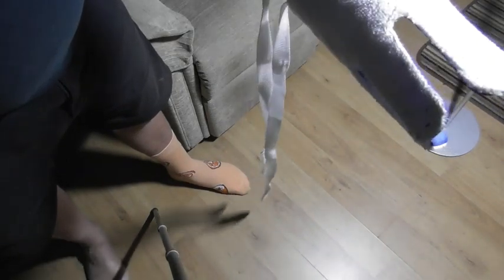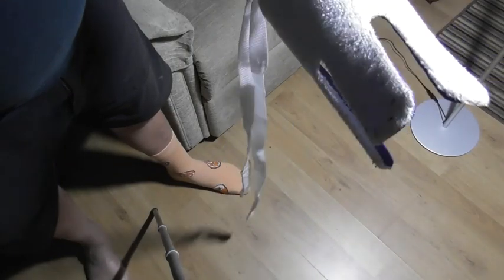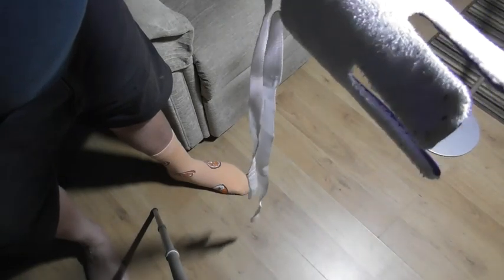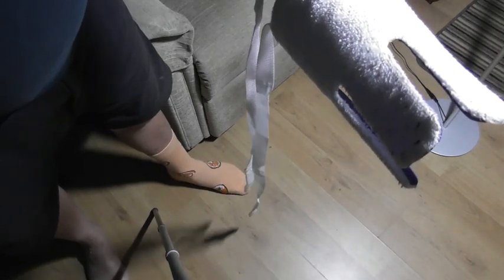I'm not a medical professional in any way, manner or means, but this is the way I put it on and find it the easiest way. I only use it for socks because sadly I don't wear stockings on a Sunday night anymore. But anyway, let's see what happens.